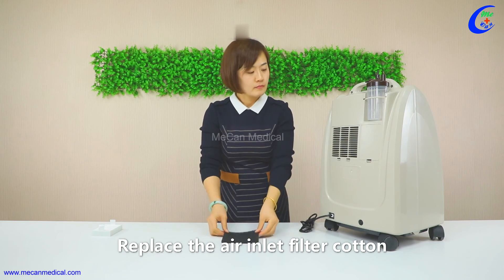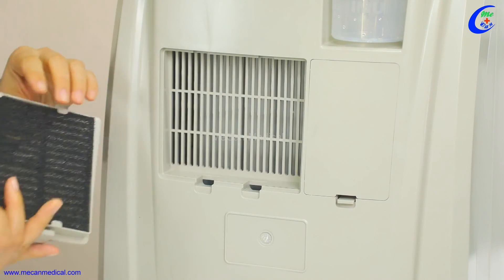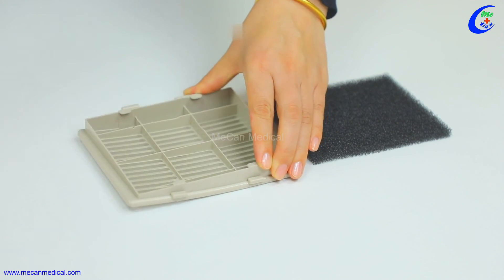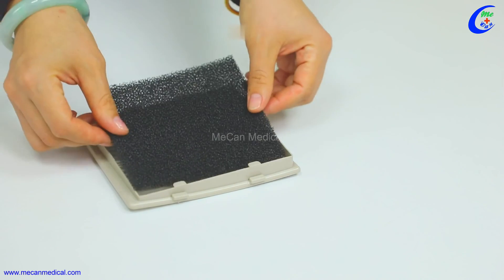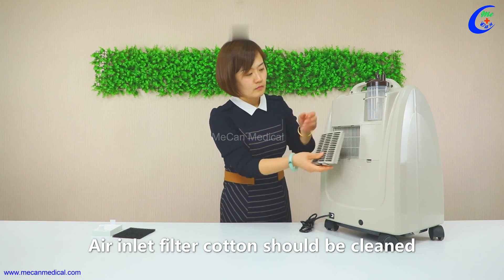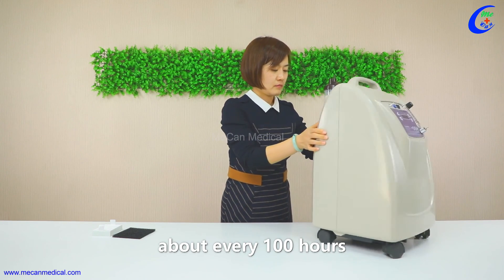Replace the air inlet filter cotton. The air inlet filter cotton should be cleaned about every 100 hours.